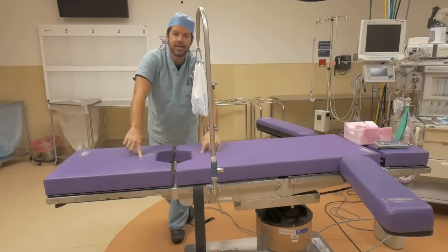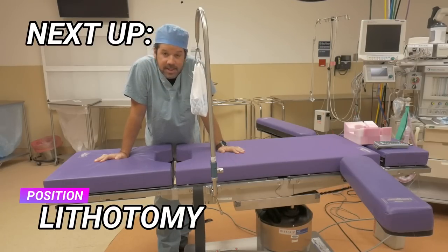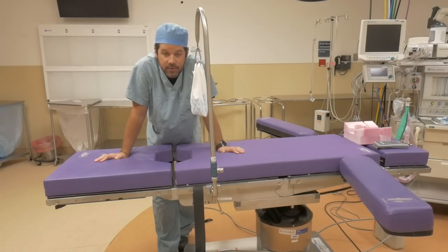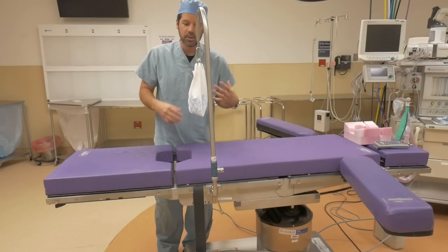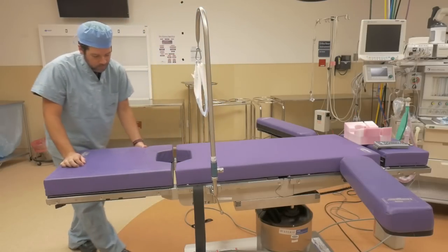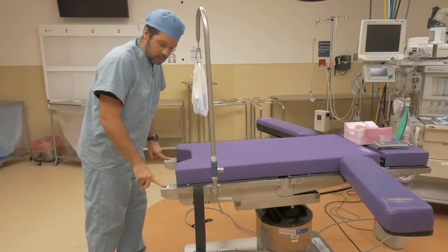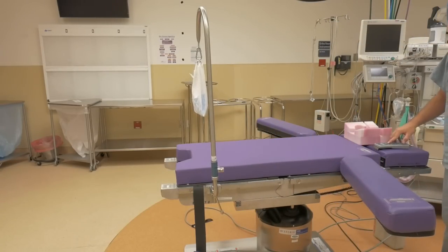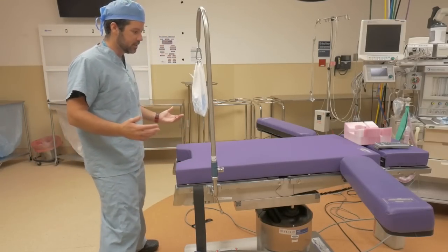You're probably wondering why there is a big hole down here between the pads on this bed. This hole is here basically for the lithotomy position. We have two different types of leg devices to hold the legs up. After we get the patient on the bed and put them to sleep, we put their legs up both at the same time into either stirrups or candy canes, and then we remove this portion of the bed. The leg section drops down and the doctor has perfect access to the patient's pelvis.